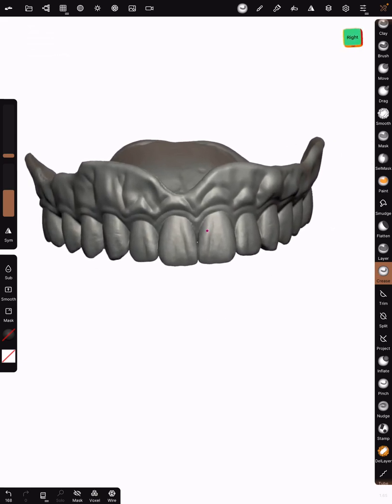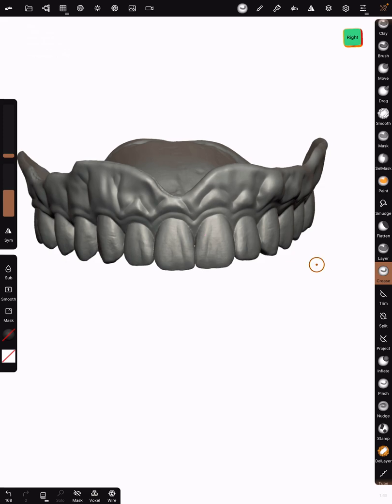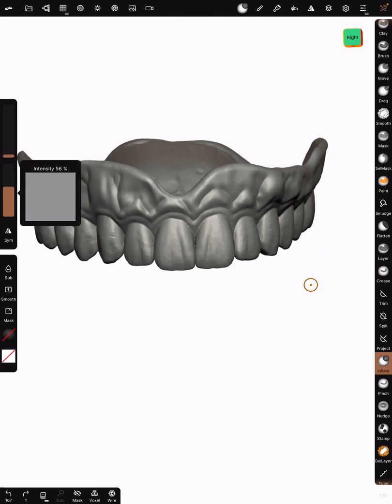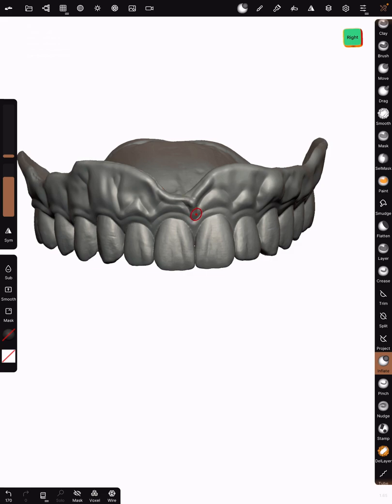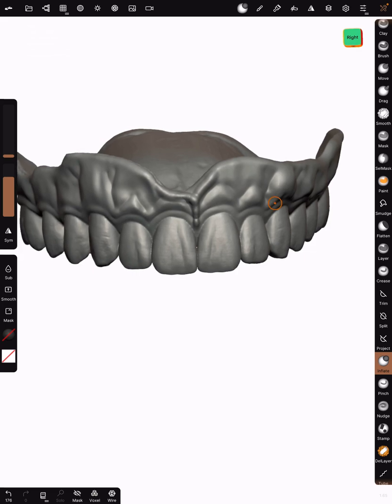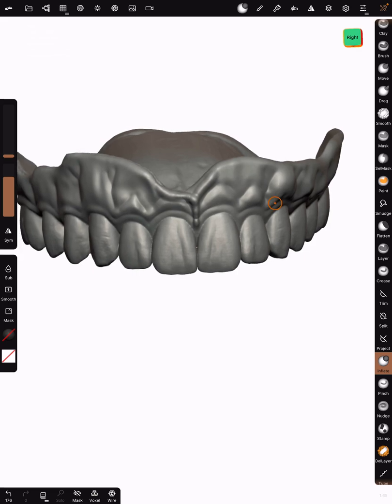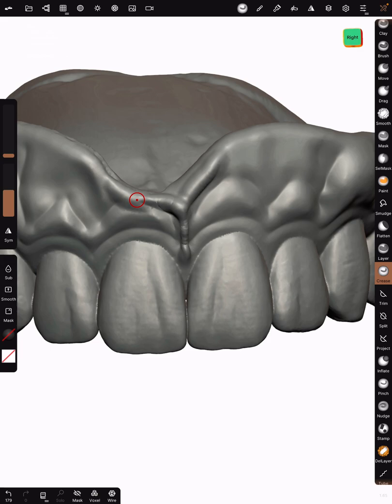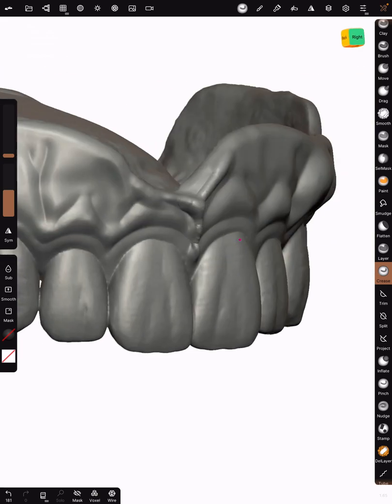Now that we have that, I'm going to create a frenum. I'm going to go back to my inflate, put my radius down at like 17, strength all the way up. Create like a little gnarly little guy right here. That was inflate at 17, intensity is pretty high up, maybe 75% of the way. Back to crease and let's go ahead and accentuate that using the crease tool, kind of drawing that, making it look gnarly.